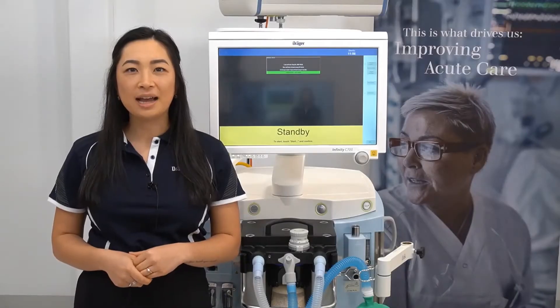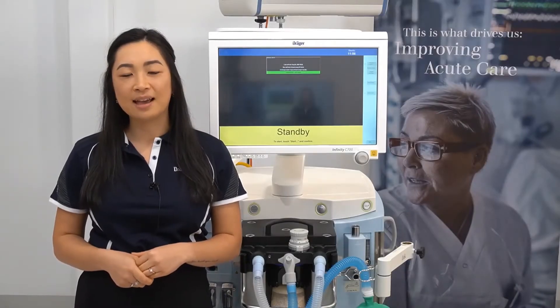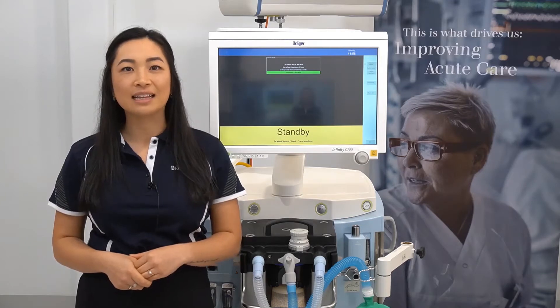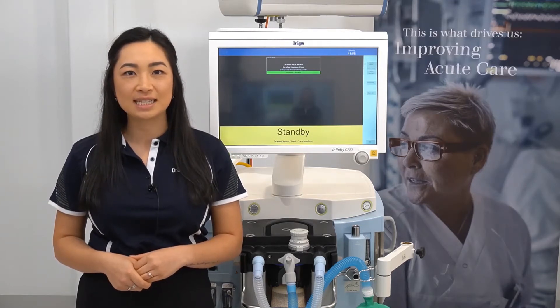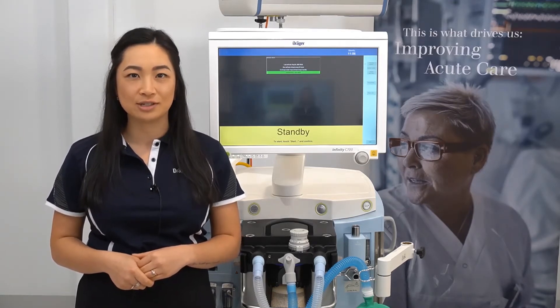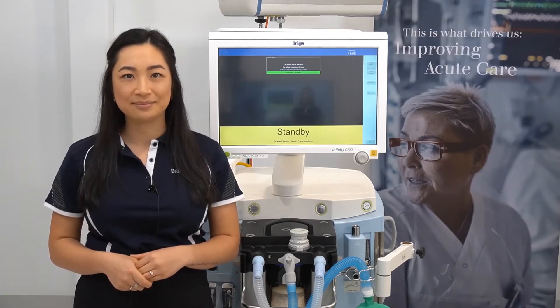Hello, my name is Samantha and in this video I'll be outlining the various ventilation modes available on the Zeus IE.